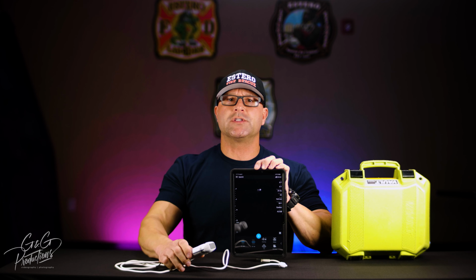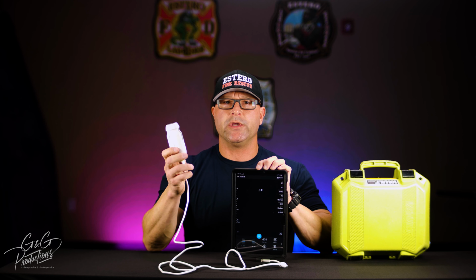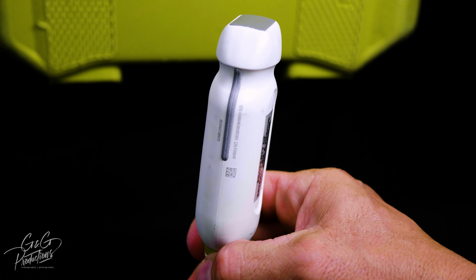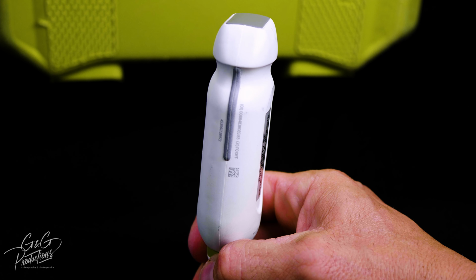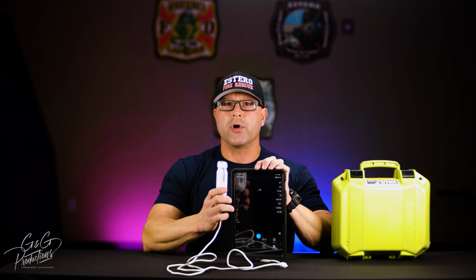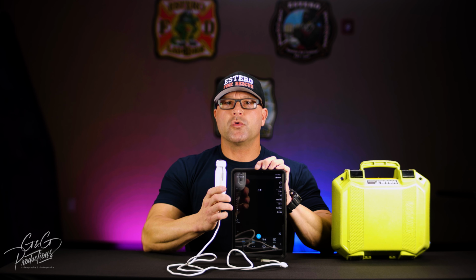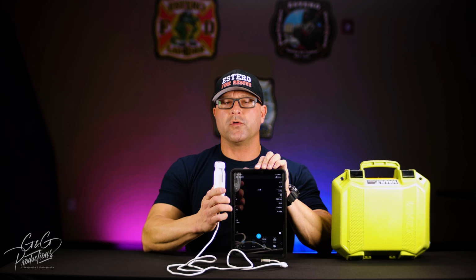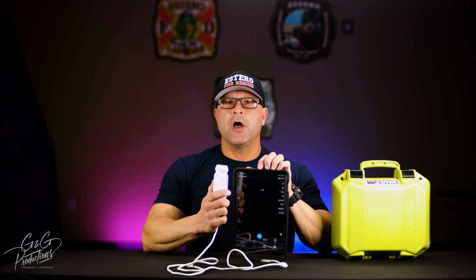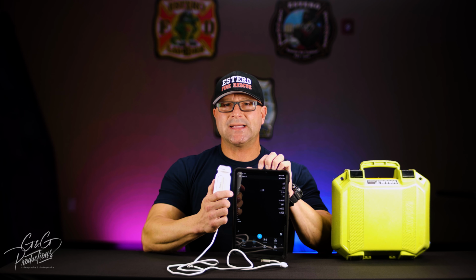So before we get any further, let's go over some of the terms, and what this thing is. We call this a transducer, a probe, or a butterfly. The terms are all interchangeable. You'll notice that there's a gray line on the side here, and that gray line is your probe marker, and it'll show up on your screen as a dot, depending on which direction or which orientation you have your probe marker on. And also worth mentioning, the top part of the screen or the top part of the image represents the body part that is closest to the probe. Another thing you want to know is what the long axis and the short axis of the probe is.